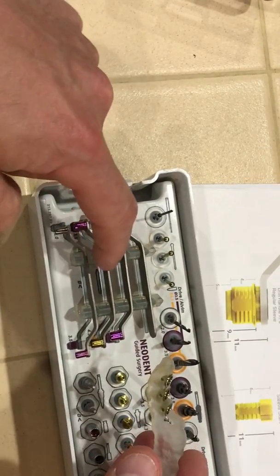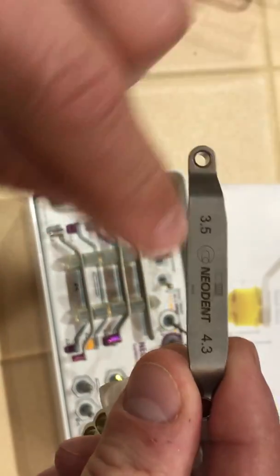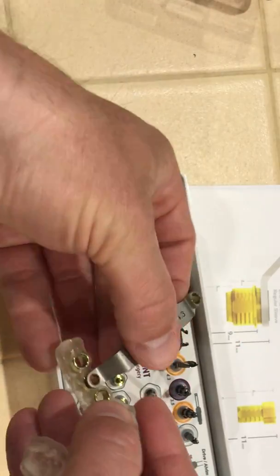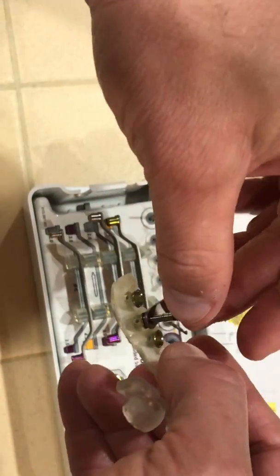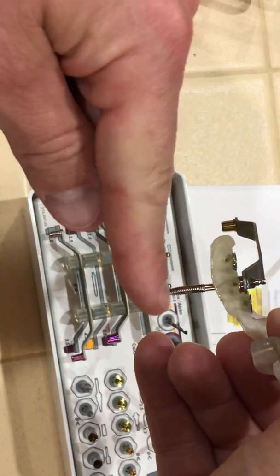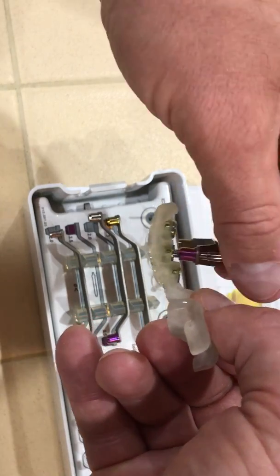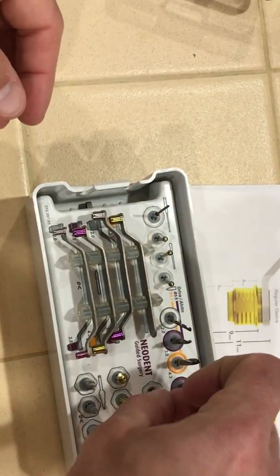What are these other spoons for? The one on the very bottom is for the magenta sleeve. The second one up — if you look at the top of our spoon, it has a picture of a tap — actually a bone tap. If we flip this over and put the magenta in, there's the 3-5 tap. It's got a little bit of play, but we put our handpiece on the same speed as the implant and slowly spin it down — about halfway, up to the lines on the side of the tap — to prepare that osteotomy a little bit more for dense bone.